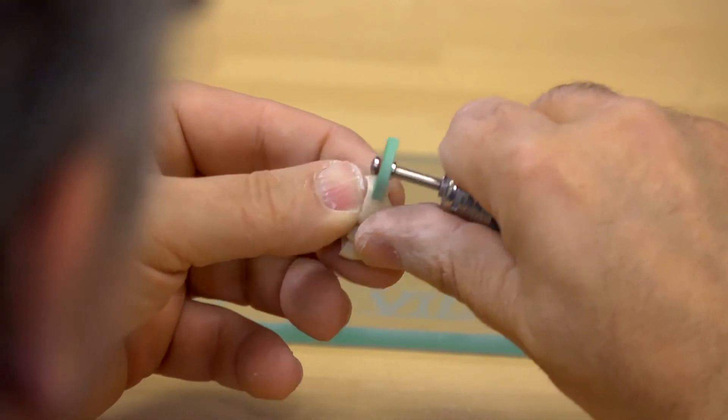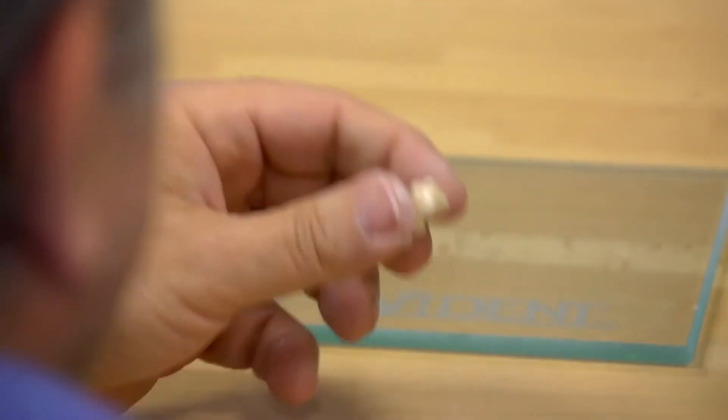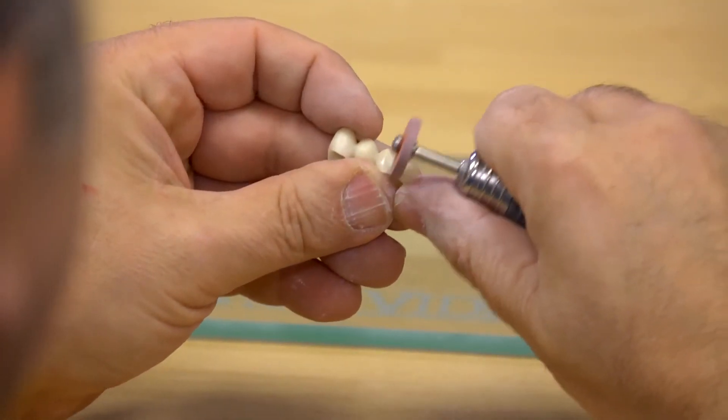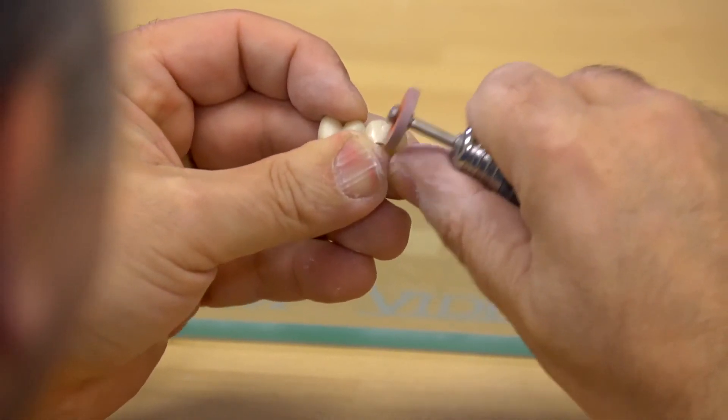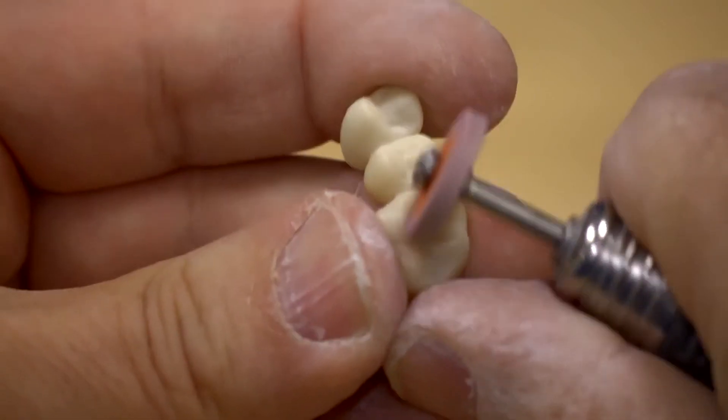As an alternative, it is possible to rework with soft diamond rubber polishers and a handpiece at low speed and low pressure. The tool must be applied flat and must not chatter. New diamond burs with varied grain size should be used if possible. Areas that are under tension in clinical use should not be ground. This includes connectors and bridge structures.